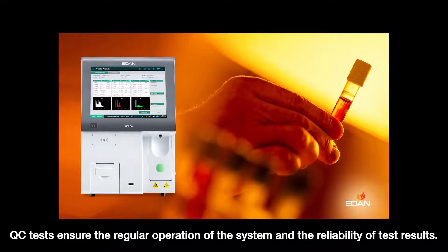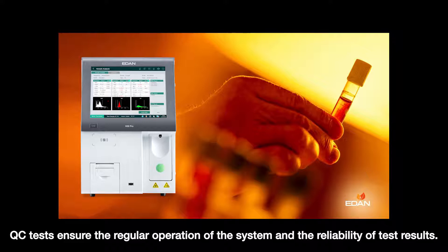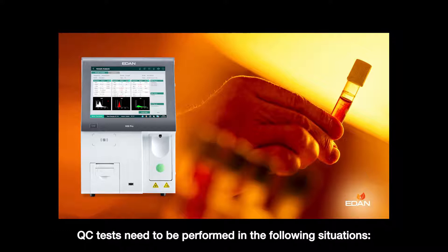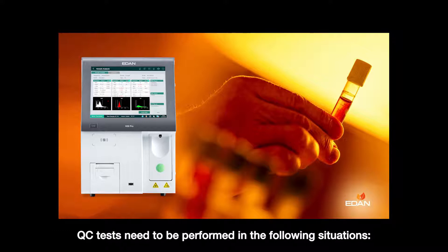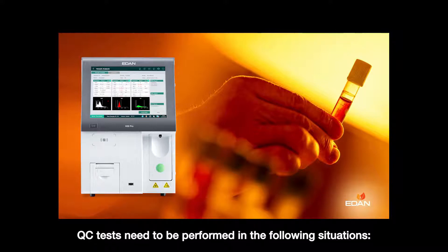Quality control tests ensure the regular operation of the system and the reliability of test results. Quality control tests need to be performed in the following situations.